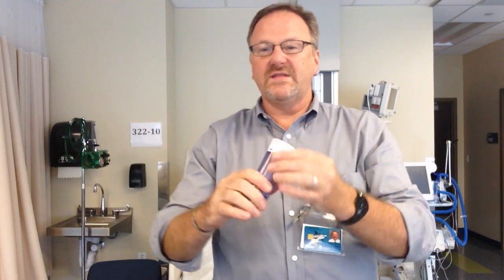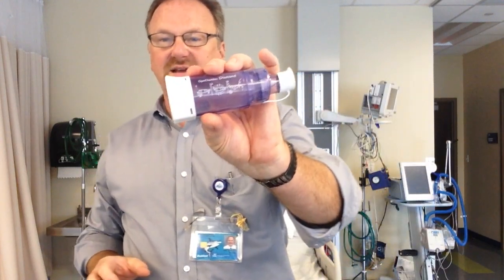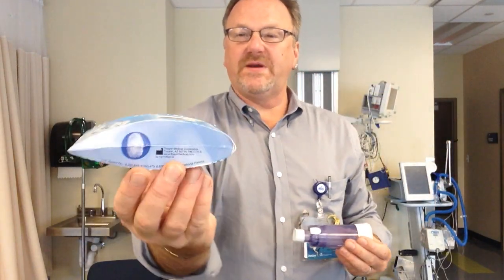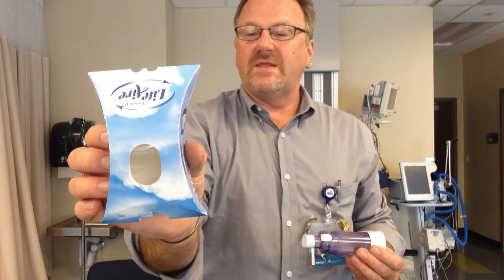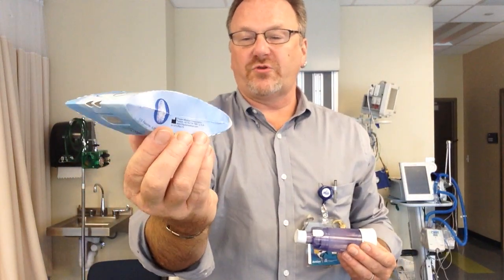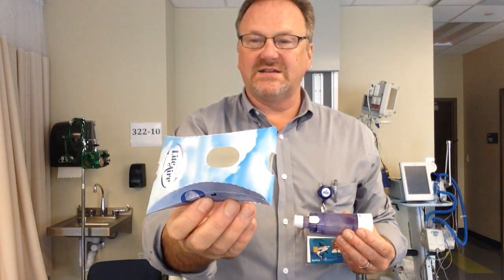There are multiple different spacer devices. They all work basically the same. This is also a spacer device — we got this at a conference. This is supposed to be a travel one, just using it as an example.